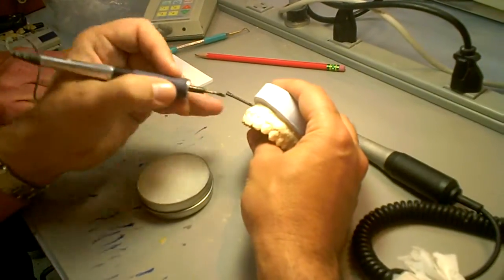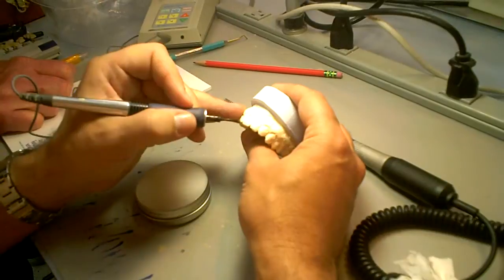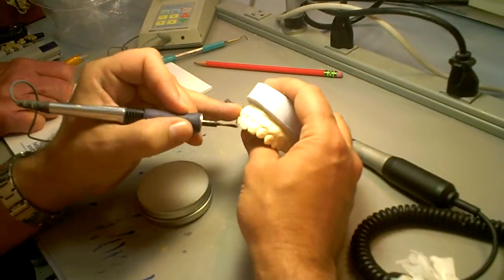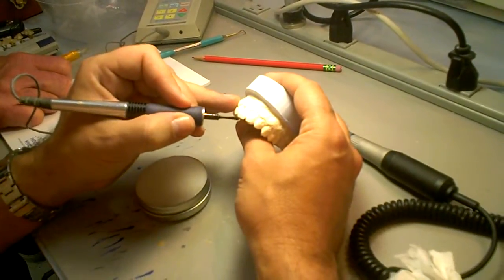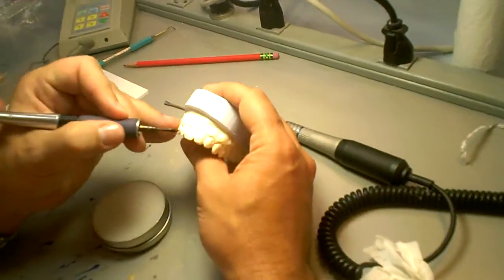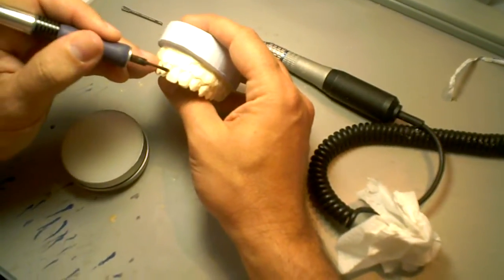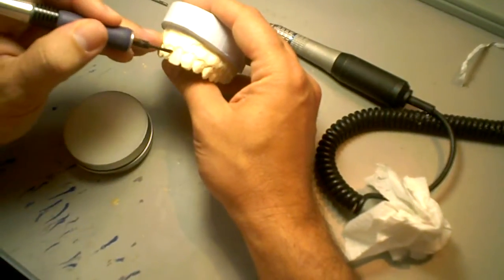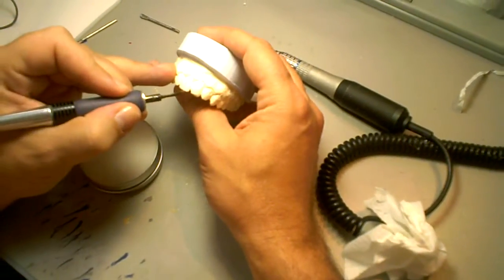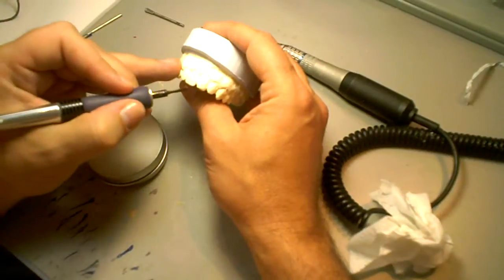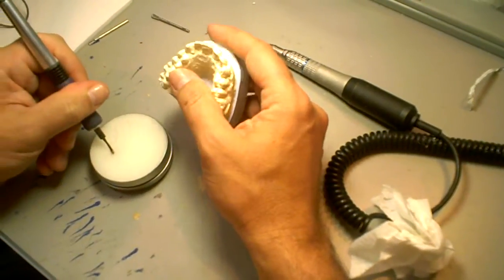I have an awful lot of torches. If you are in the primitive days with the Bunsen burner, go ahead, Mr. Technology Guy. You can't—well sure, go ahead, Dr. Vasquez, crazy guy. I don't have that. You need to get one of these waxers. They're always warm. They're always nice. And this is only, I think, like 300 bucks. And I can get you a discount through the supplier that I buy them from.